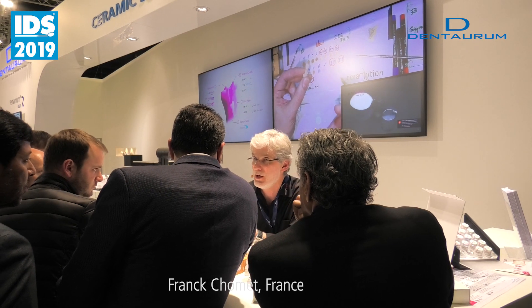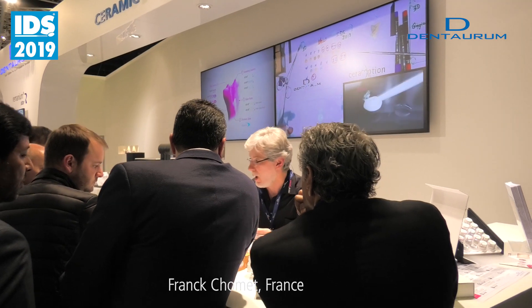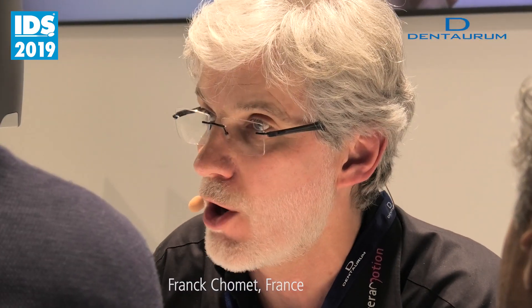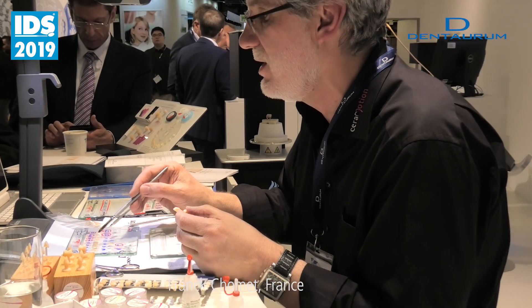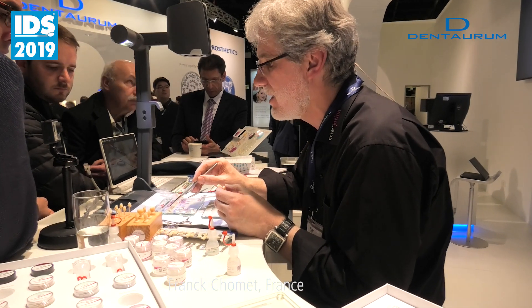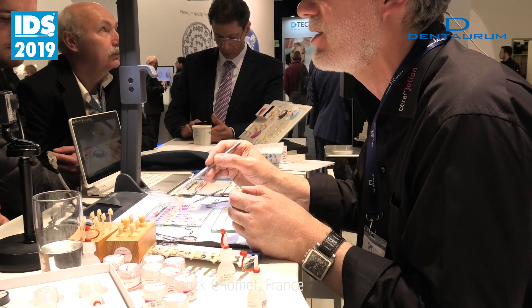So it's why we propose to you 11 shades from the 3D Master colors. If you need to correct, you have to play with the L, R, L+, or orange. Of course, here are the Vita Classic one touch: A, B, C, D — to correct inside the group A, B, C, D. But again, you can mix A with B, in any ratio. You can also mix with R, etc.